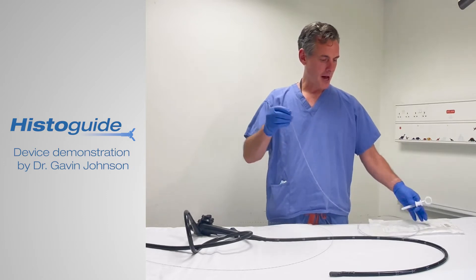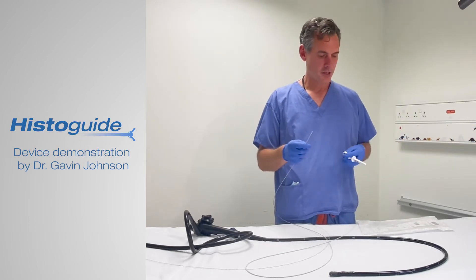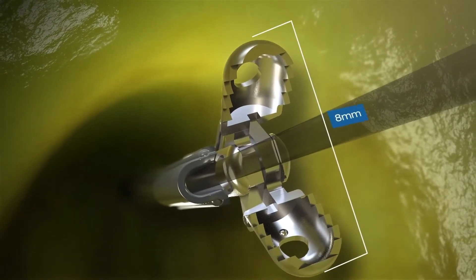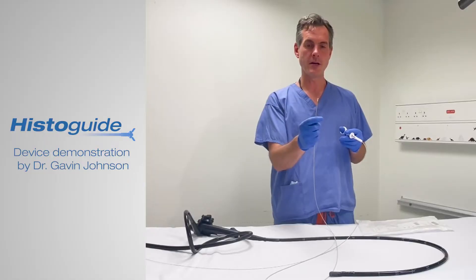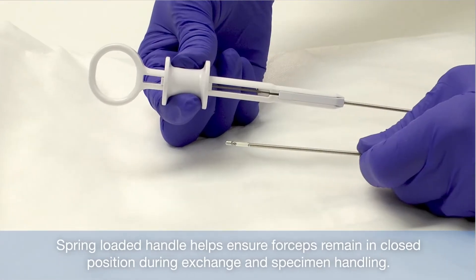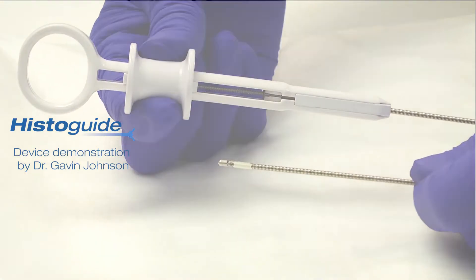So it comes out of the pack as is. We're going to straighten it out and check that the device is working. The thumb ring away is going to open your forceps — they start at 2.2mm and then open up to 8mm. Be a little bit gentle with the handle; you don't want to overdo the spring-loaded mechanism, because once we put the slider back towards the thumb ring, the spring keeps them closed, so as you exit the scope the cups stay closed.